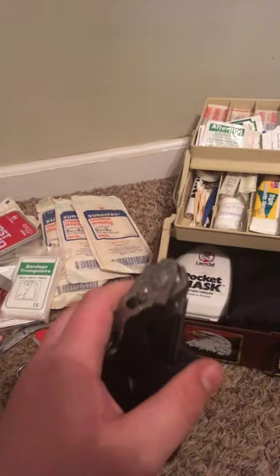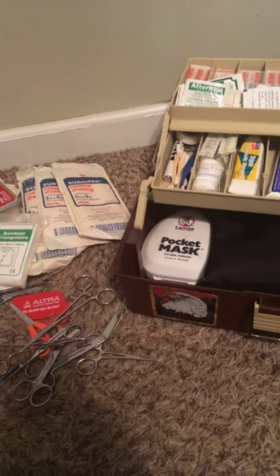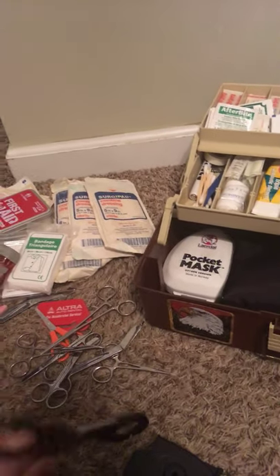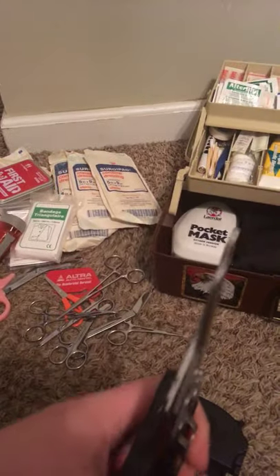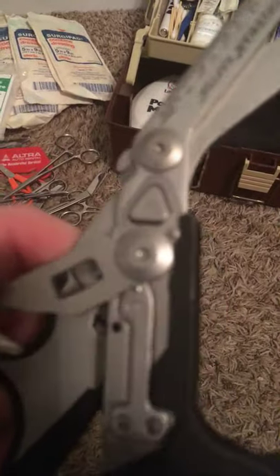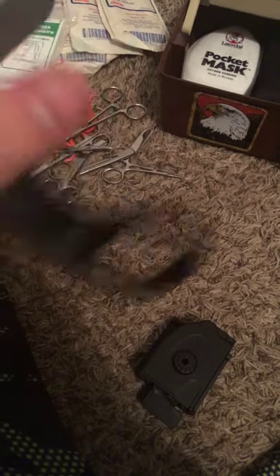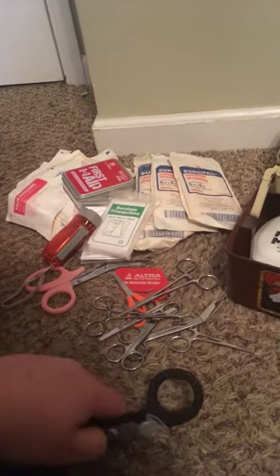CPR mask. And here's another item I'm going to review later — a pair of Leatherman Raptors. I got my pair for free from a giveaway on Facebook, but they normally run around 60 to $80. They have a pair of shears, a ruler, a strap cutter, an oxygen tank wrench, a lanyard loop, and a glass breaker. It also locks open with two little triangle buttons.